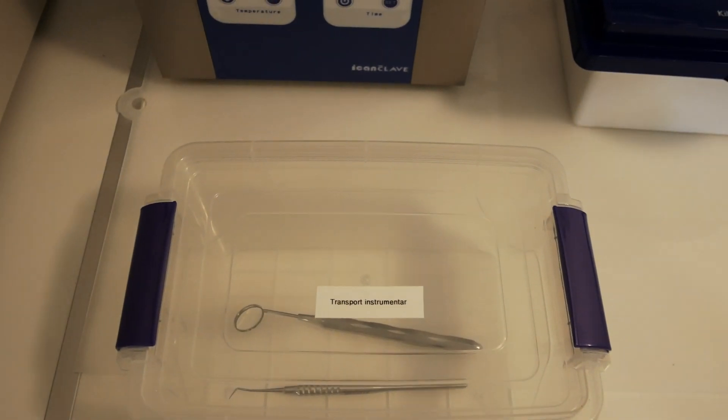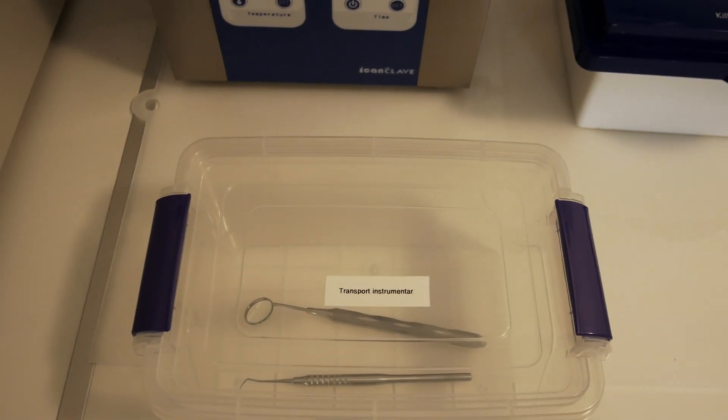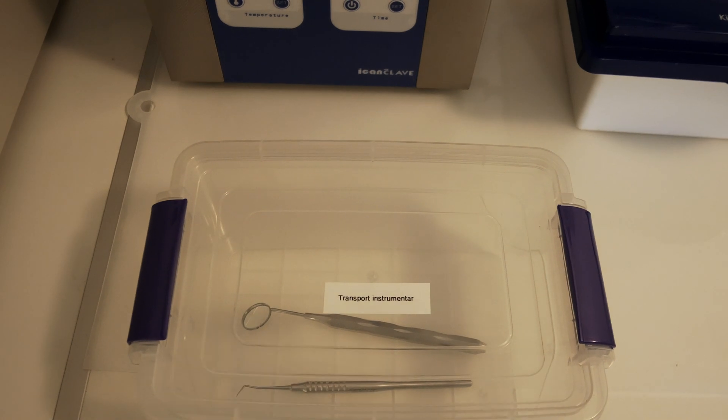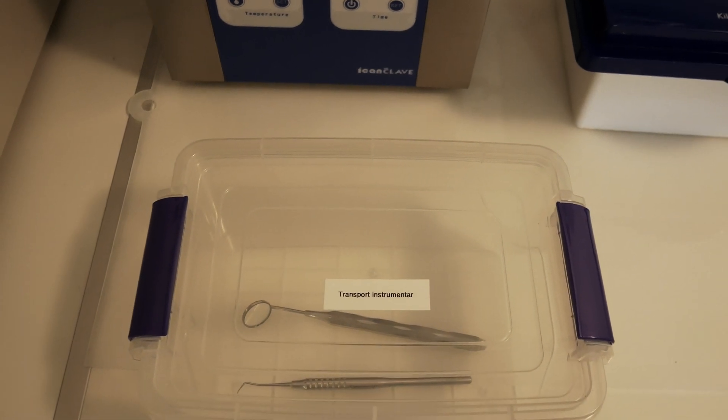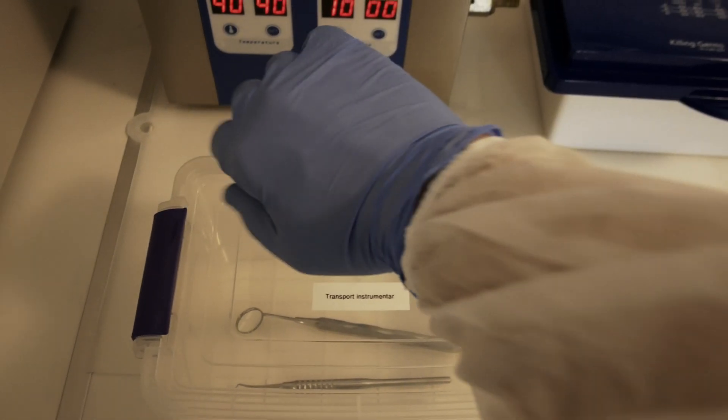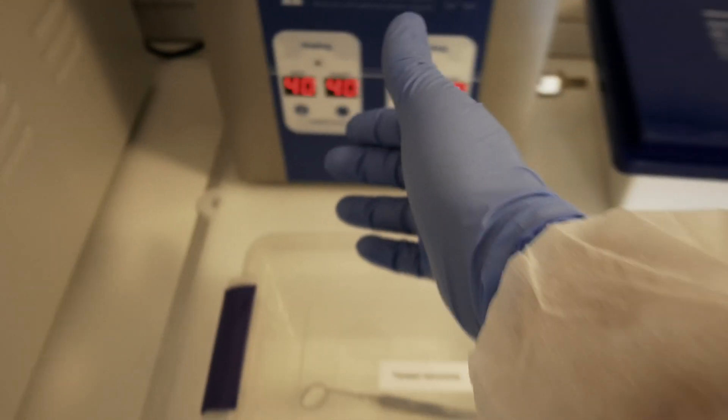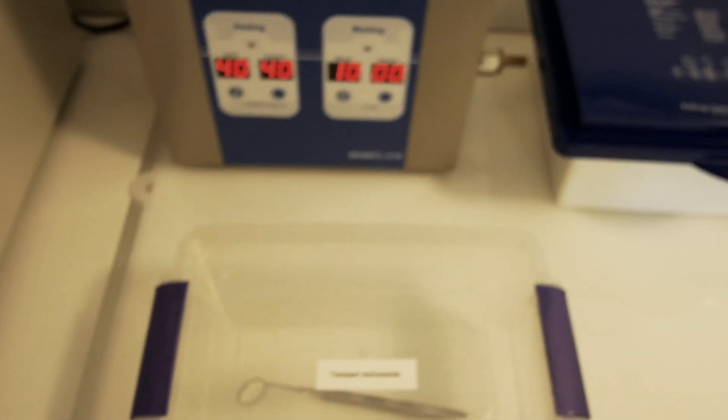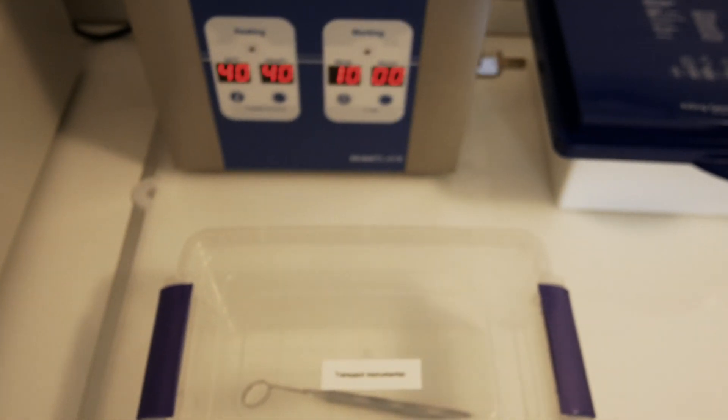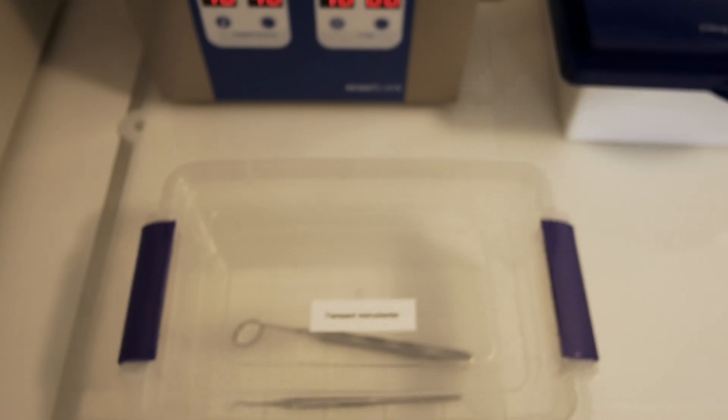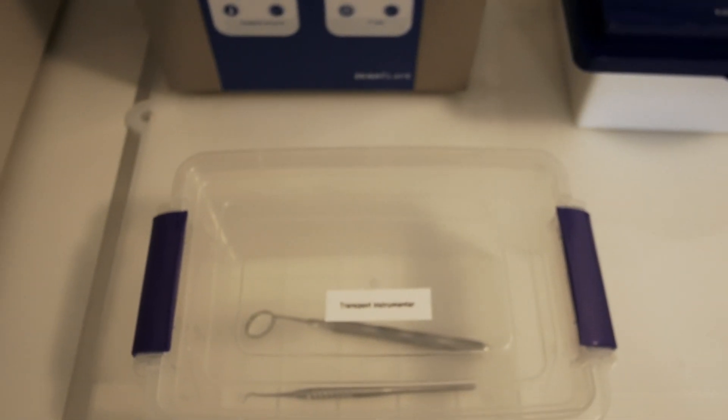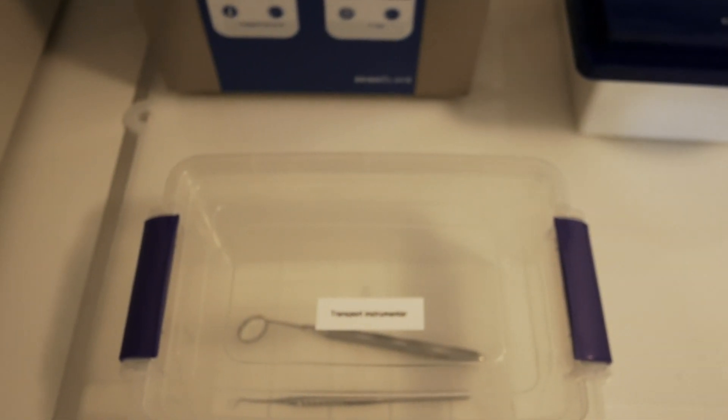First of all, in order to process instruments, you need personal protective equipment, PPE. That means gloves, a gown with sleeves, glasses, and maybe something to protect your head, your hair.